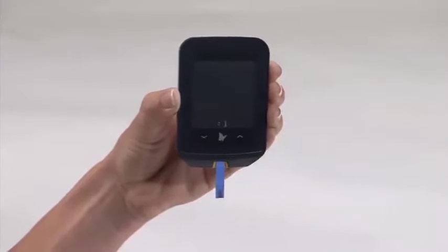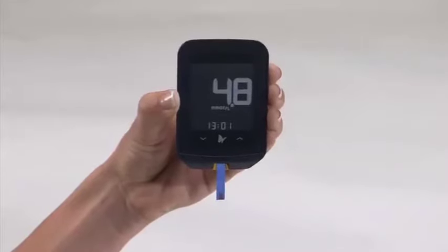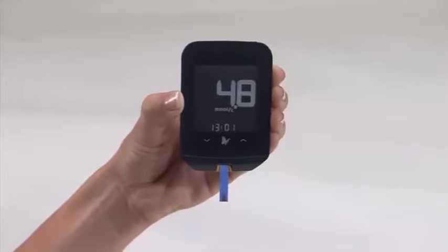You will then see a five-second countdown. Do not remove the test strip from the meter during the countdown. The test is complete when the result appears on the meter screen.